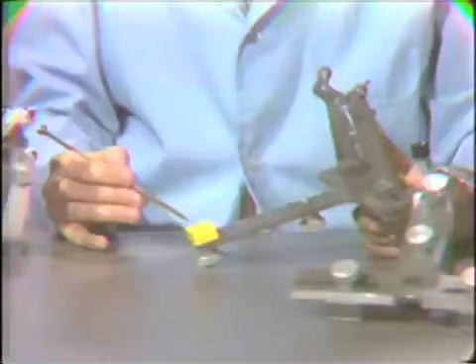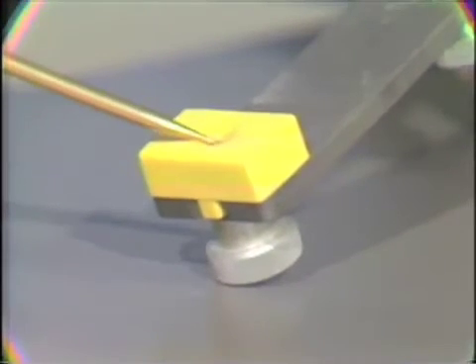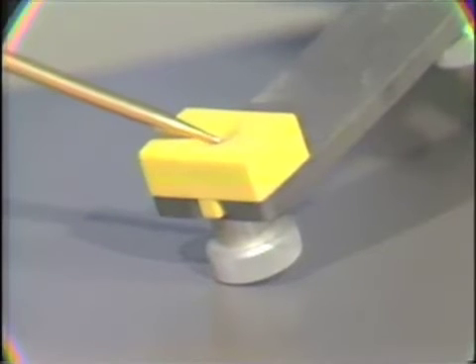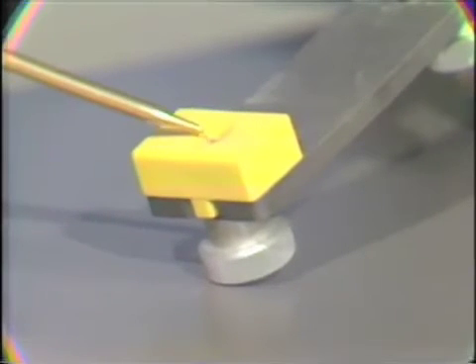Now, other adjustments of the articulator, as are fairly common with most adjustable articulators, it has provisions for making a custom molded incisal table. Here you see the blank, and this is puddled with soft acrylic, and you can mold a custom incisal table, or use a mechanical equivalent table similar to the Whip Mix or the Hanau articulator.